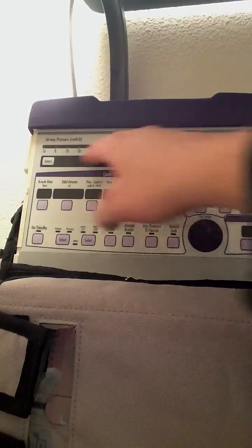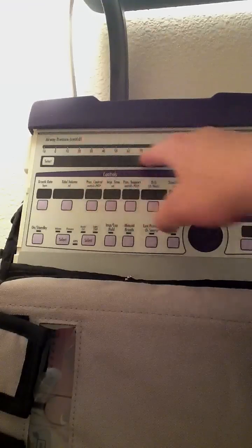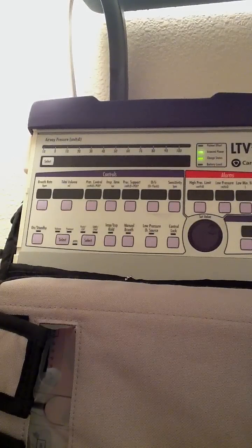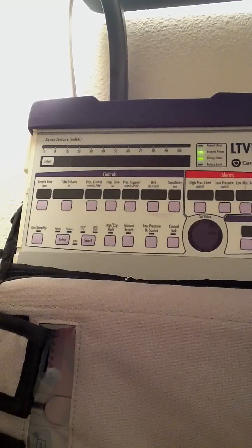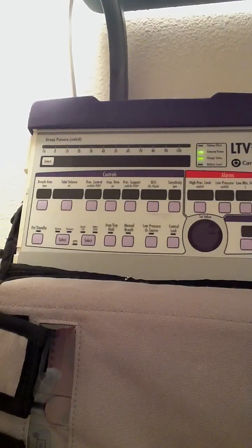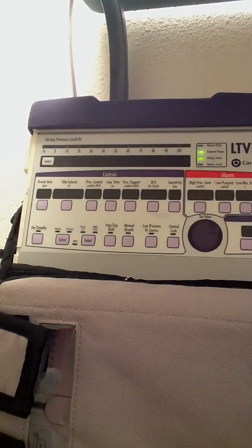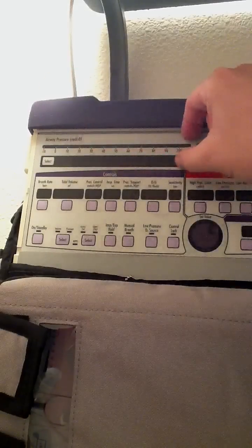Every few seconds this bar will change and give me flow, I:E ratio, peak inspiratory pressure, calculated flow, rate, minute ventilation, and so on. You can manually hit the select button and manually select whatever information you want to monitor. So this is information about the patient up here.